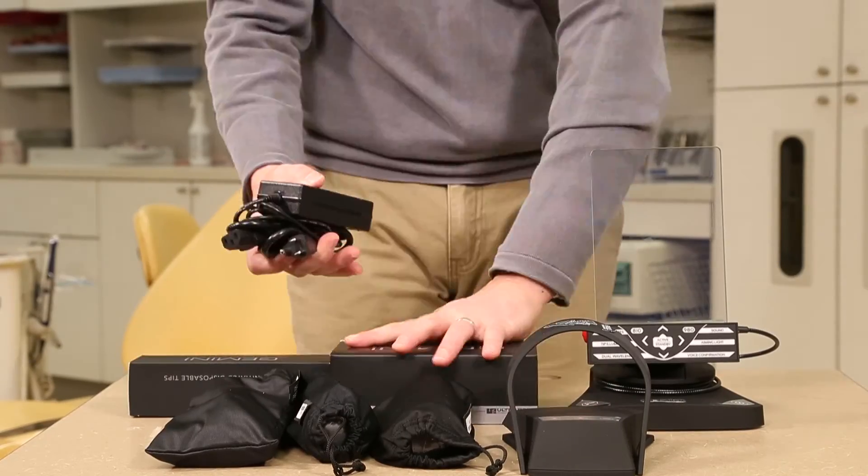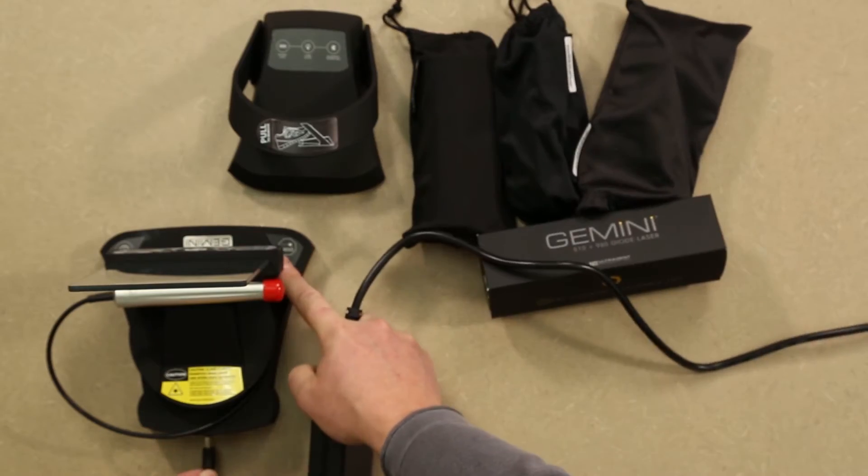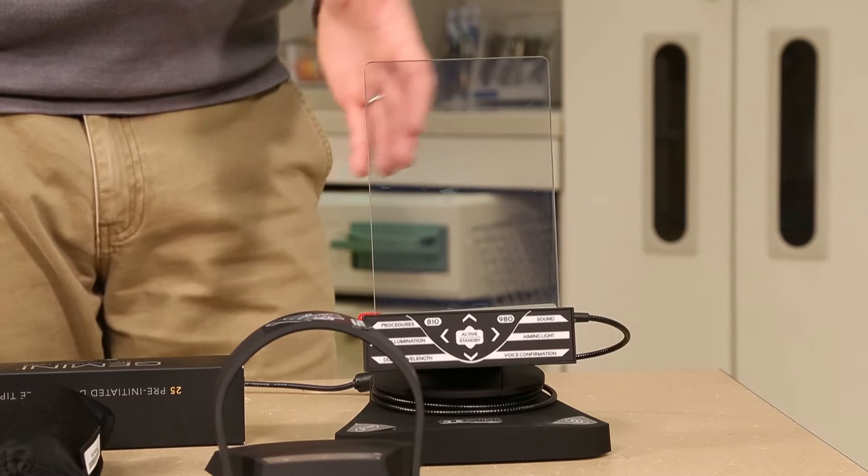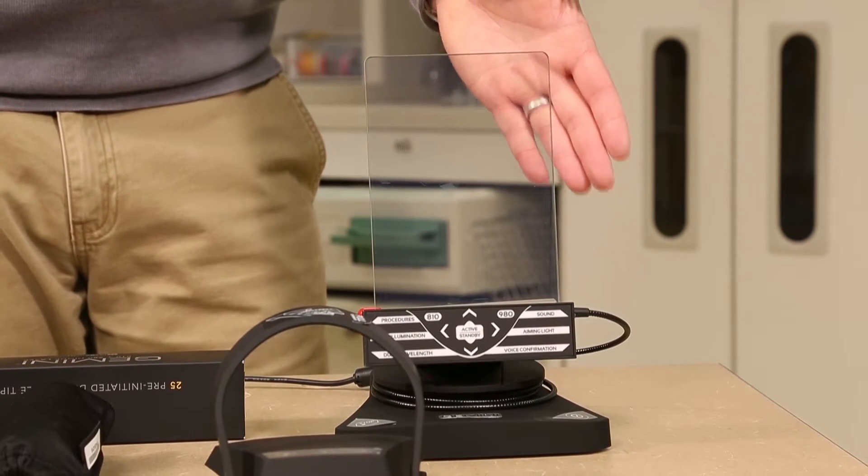Once the contents are unpacked, go ahead and plug in your laser to a power supply. Note that nothing will be displayed indicating power to the unit.